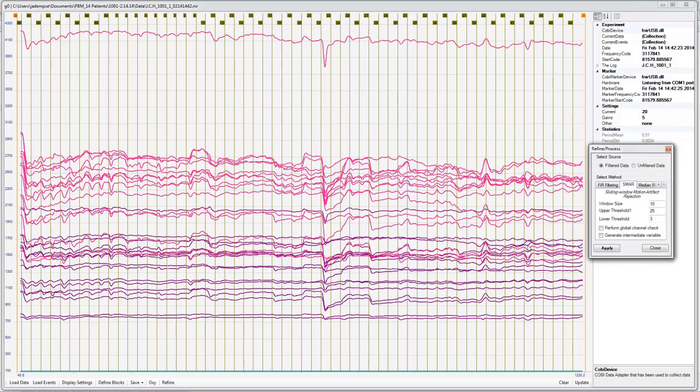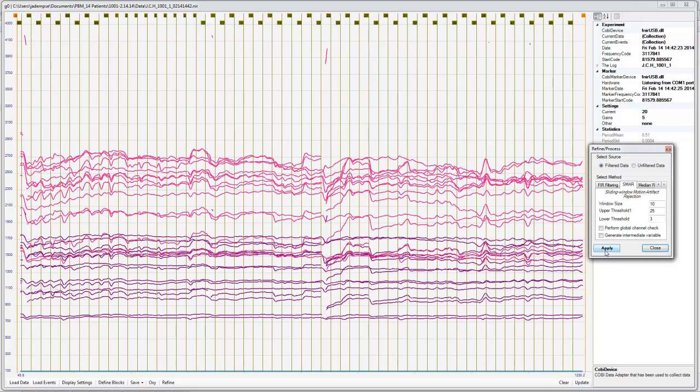So the patient moved, and that moved the electrode. So I would assume that these lines here, this quick jump downward, will be eliminated as well. Also, we had a problem with optode 5 for this patient, and so I think they might just kick all of optode 5. We're going to click apply. And you can see most of optode 5 went out, and we had all of these jumps removed as well.